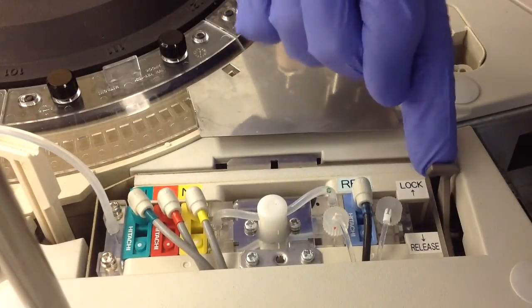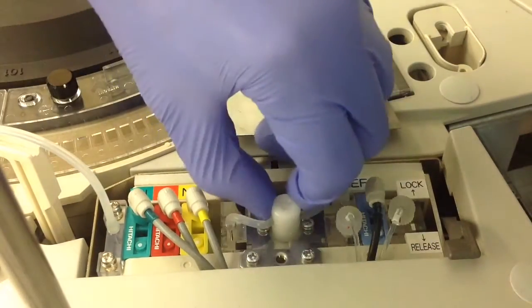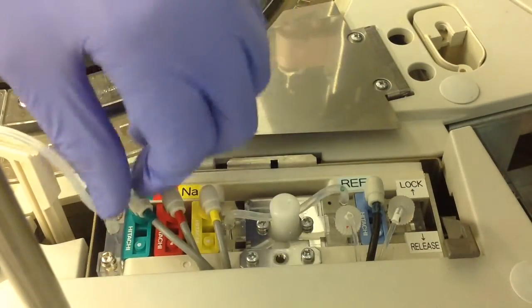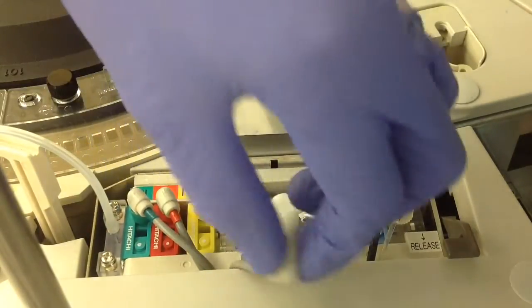To take them out, the first thing you do is switch from lock to release — a little push and you'll feel a click. What that does is release everything so you can move it around, and it will let you pull them out once you unplug the cables.